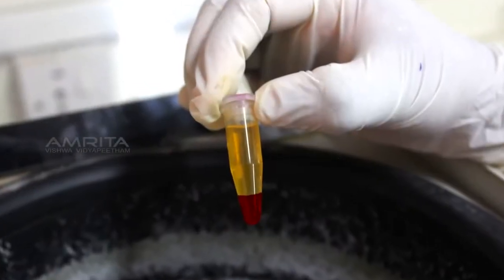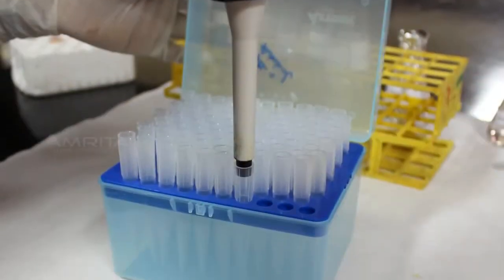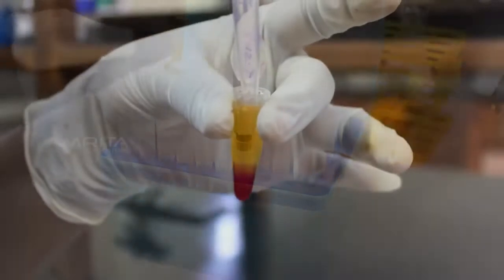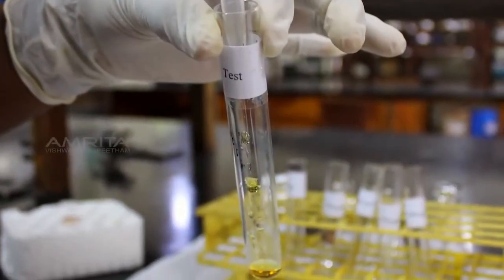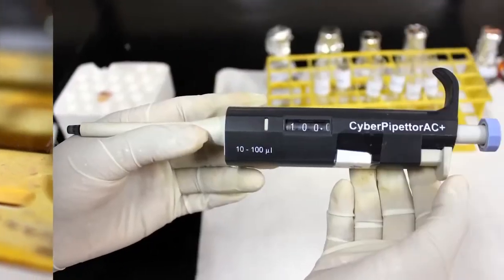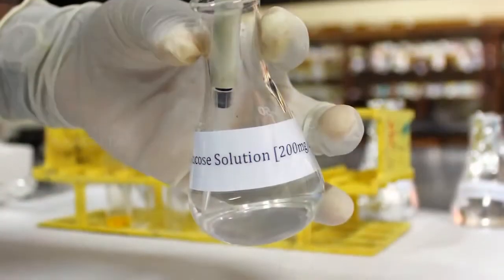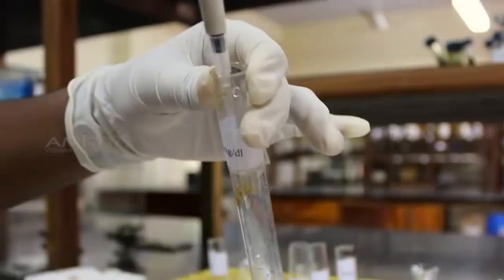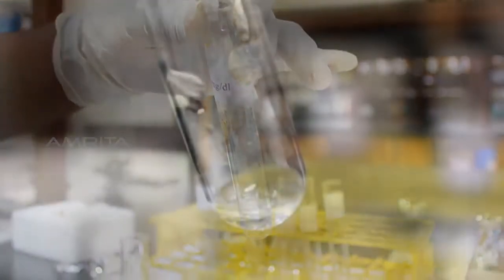After 5 minutes, take out the centrifuge tube and transfer 500 µL of supernatant carefully from the centrifuge tube to a test tube labelled as test. Next, transfer 125 µL of glucose standard solution to a test tube labelled as 50 mg per deciliter.